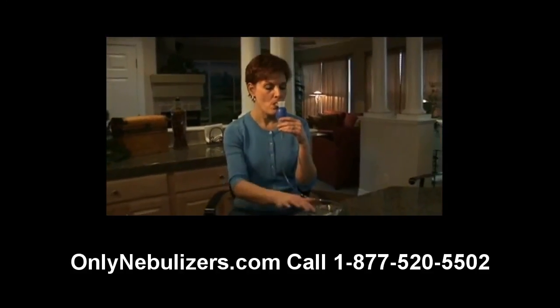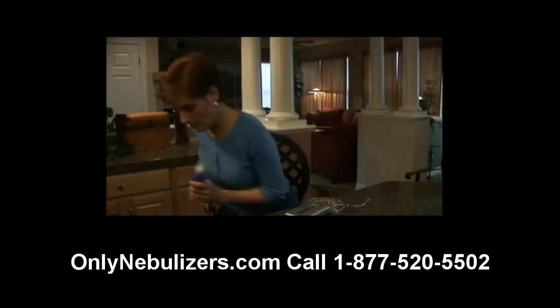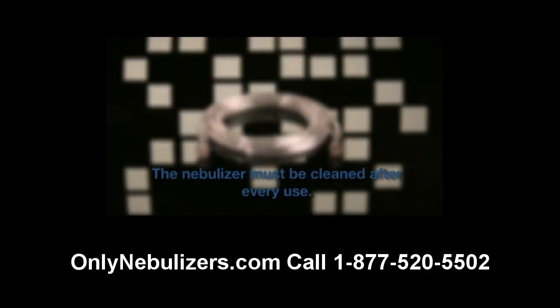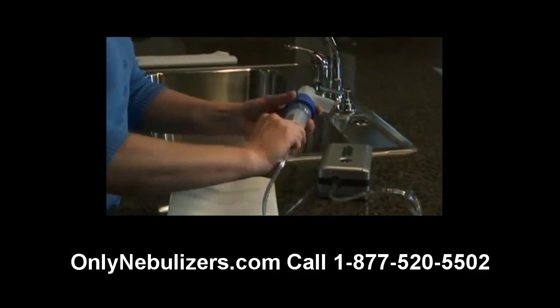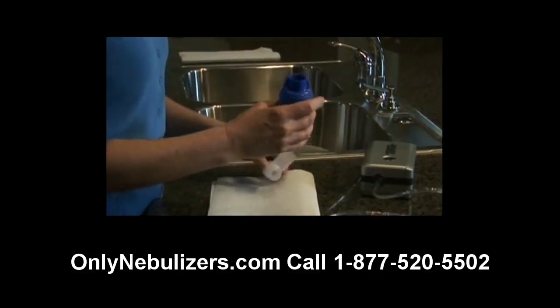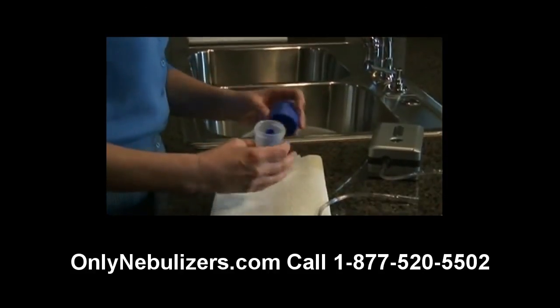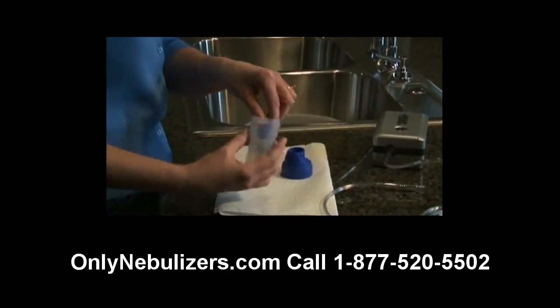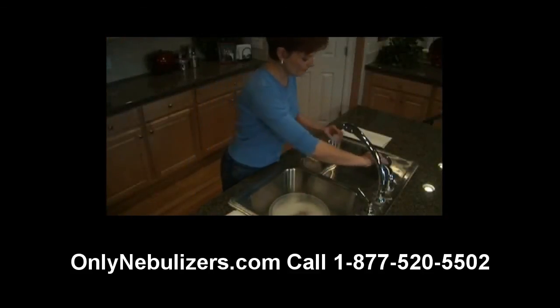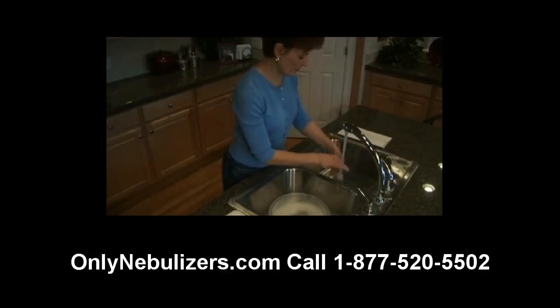When you've completed treatment, turn off the compressor and unplug the unit from the wall power outlet. Without exception, all parts of the nebulizer except for the tubing must be cleaned before initial use and after each use. The inside of the tubing does not have to be washed because only filtered air passes through it. Start by disconnecting the tubing from the air inlet connector. To disassemble the nebulizer, first remove the mouthpiece from the nebulizer cap by grasping firmly and pulling straight up — do not twist the mouthpiece. Next, remove the nebulizer cap by turning counterclockwise, then remove the baffle from the medicine cup by lifting straight up. Now wash all parts except the tubing in a solution of hot water and dishwashing detergent. Rinse under hot tap water for 30 seconds and allow to air dry.